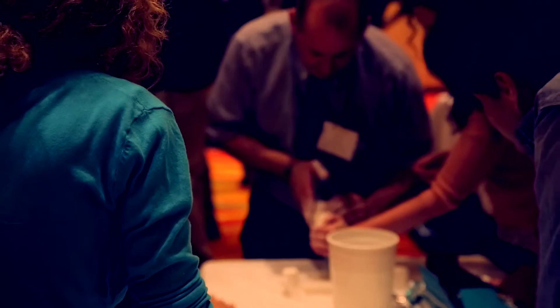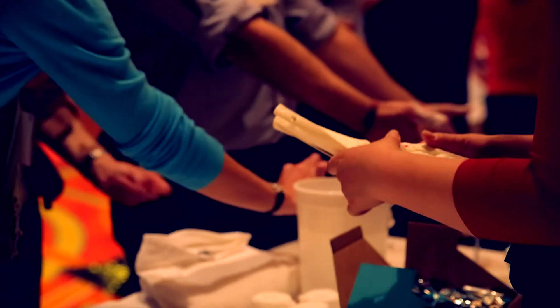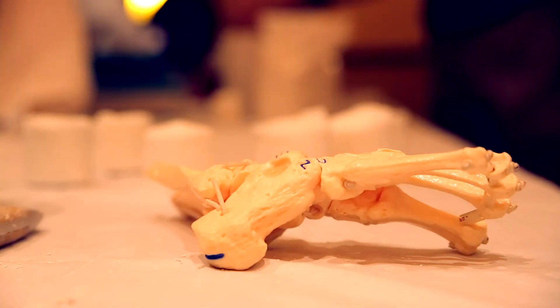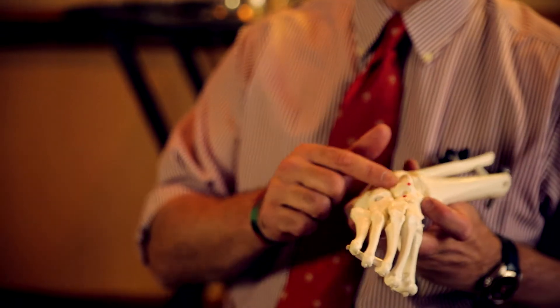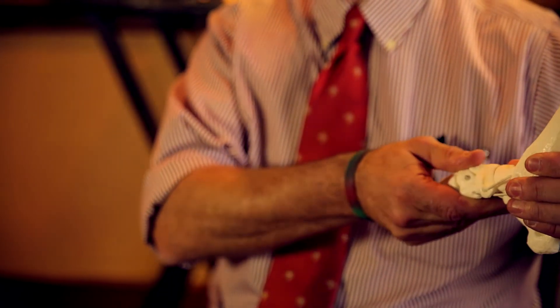The Mitchell model is absolutely fundamental to my training in less developed world conditions in the Ponseti method. This is a particularly superb model to demonstrate the Ponseti technique — an articulated skeletal model of a foot in equinovarus position. It demonstrates where the thumb should go, the handholds, and where your thumb should not go. It's a perfect thing for demonstrating how to do the Ponseti manipulation.